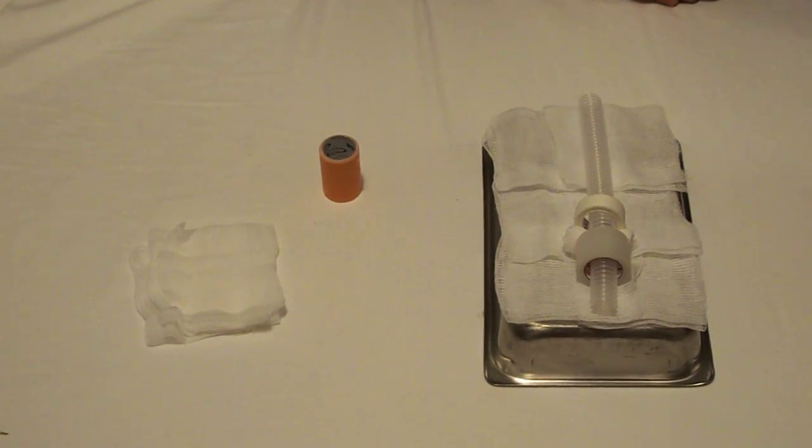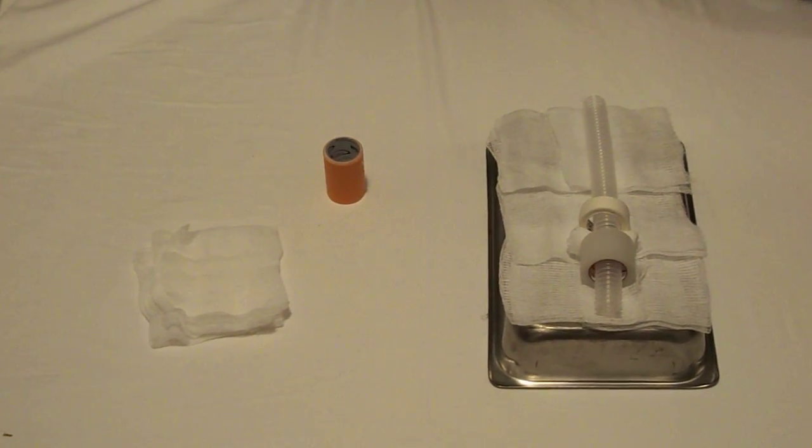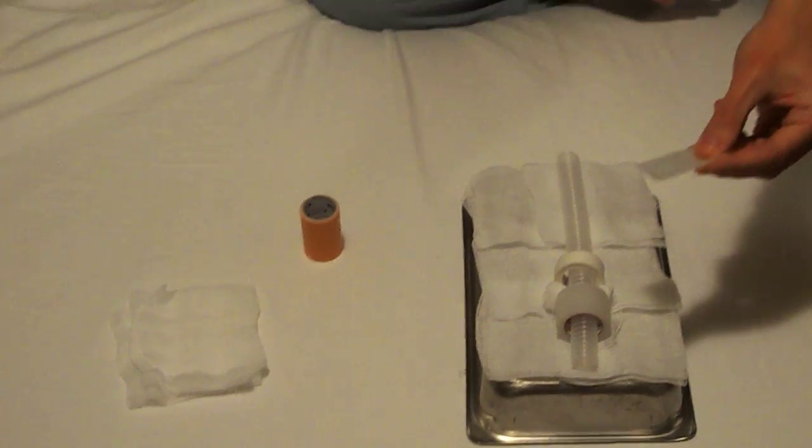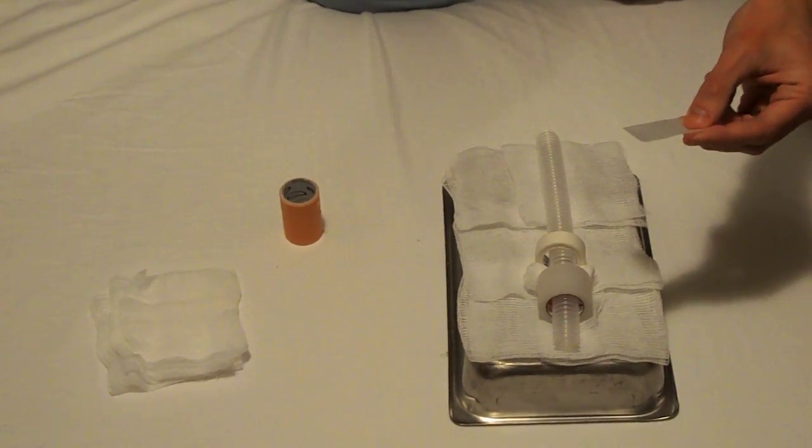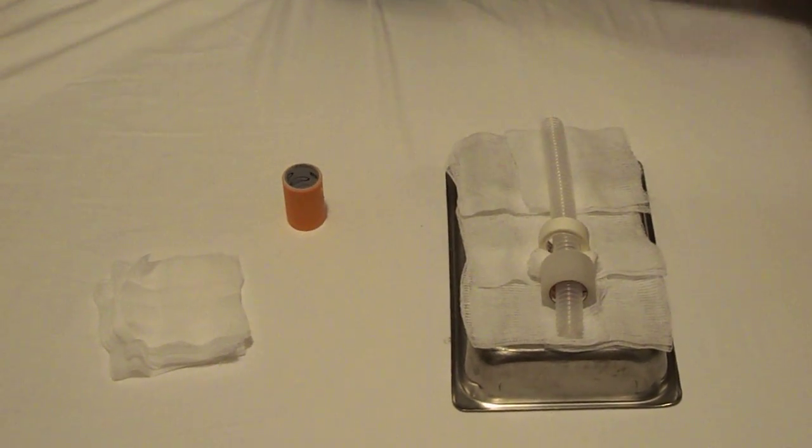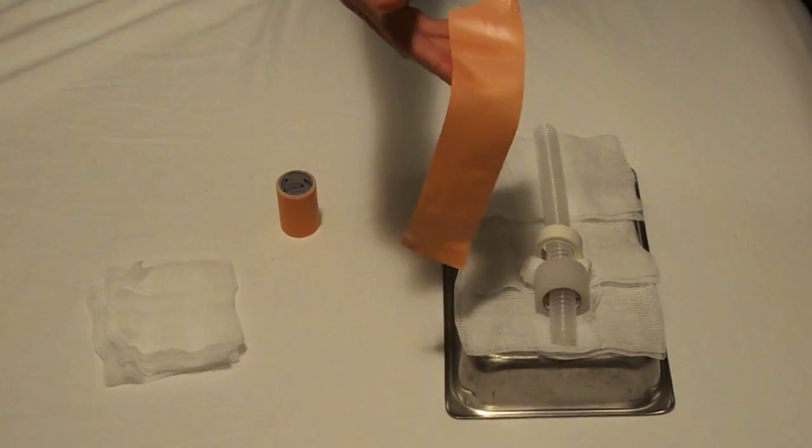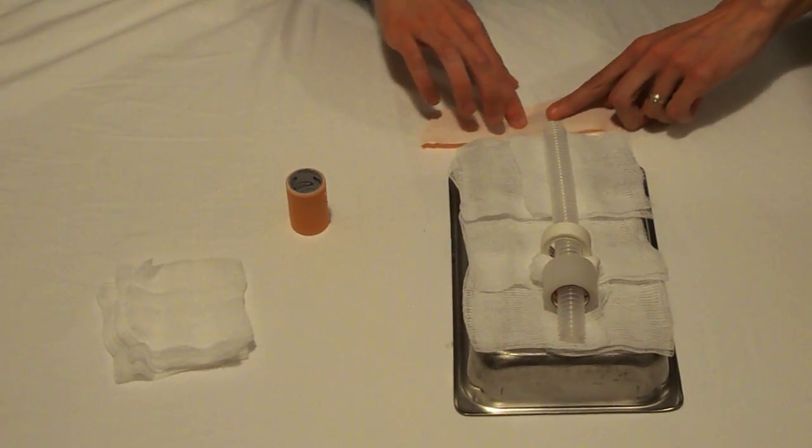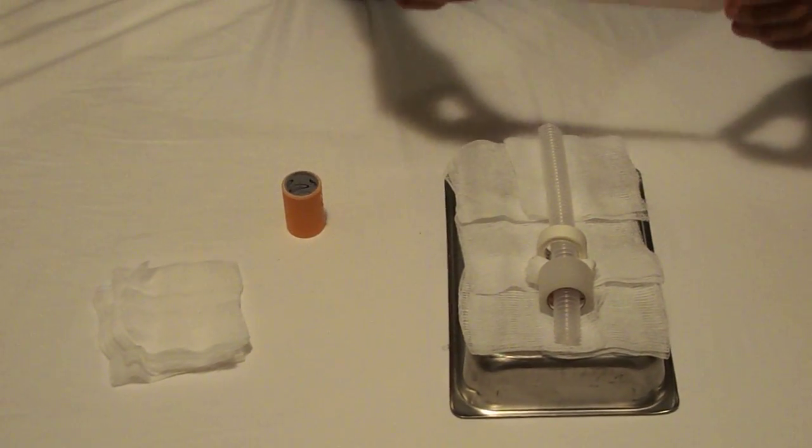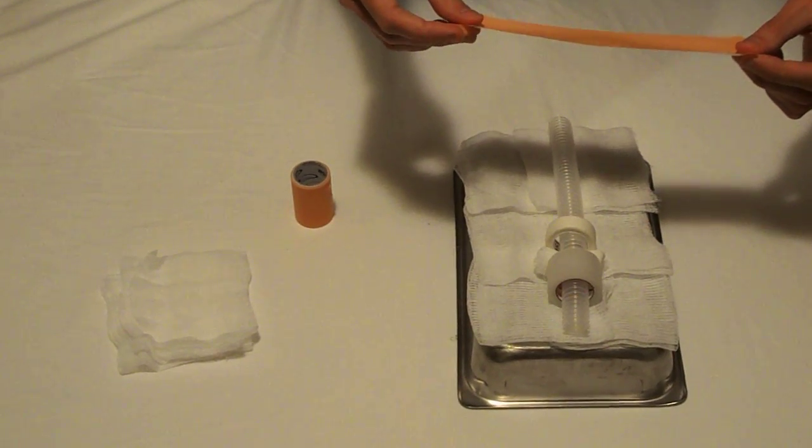Now, at this point, all you have to do is place your skin and for this, what I like to do is take three pieces of the IV tape that are just layered on top of one another and I use that to reinforce one of the pieces of waterproof tape just like so and that makes it so that you have a little bit more thickness to the skin over top of the cricothyroid membrane.